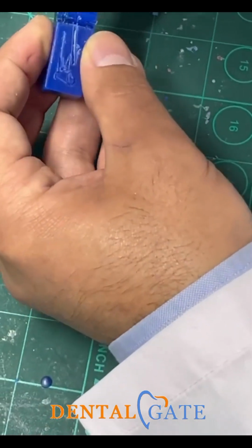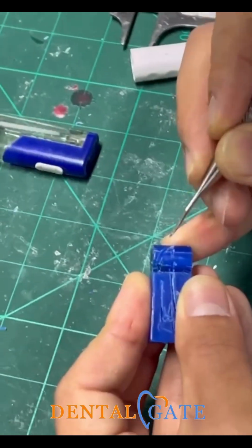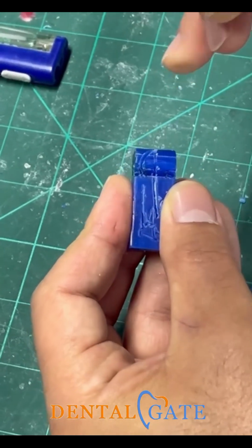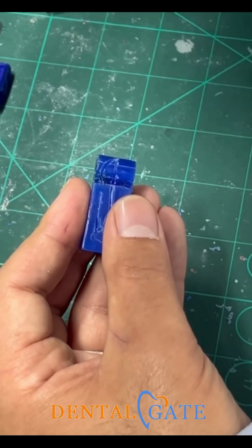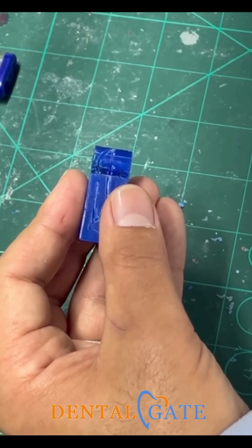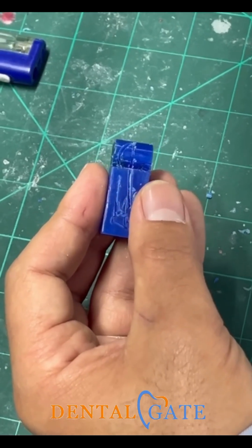Don't make a severe curvature. You can leave some excess of wax to assure that there is sufficient material for the carving, okay? Don't make it severe, okay? Because you have a base, you have a correct base. Don't be afraid about that. Just make a curve, start to make a curve, okay?